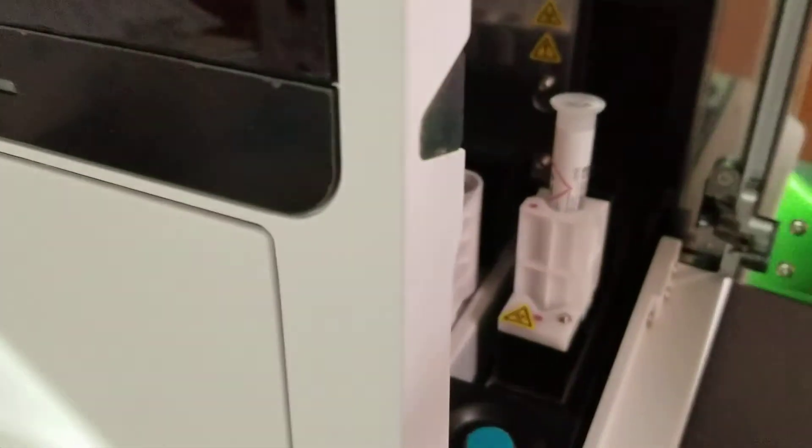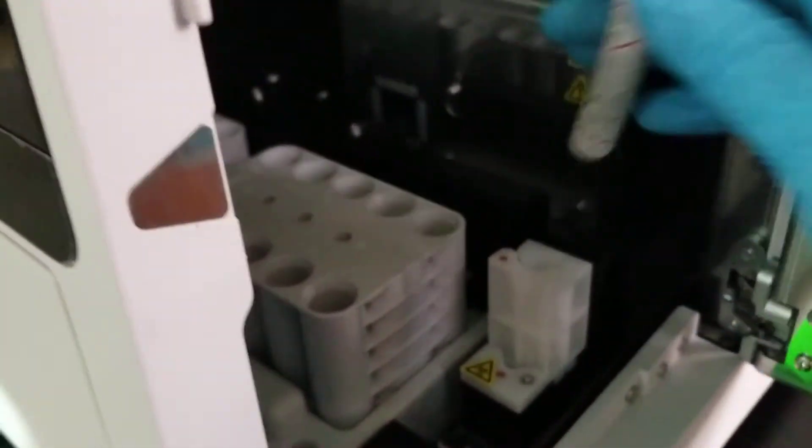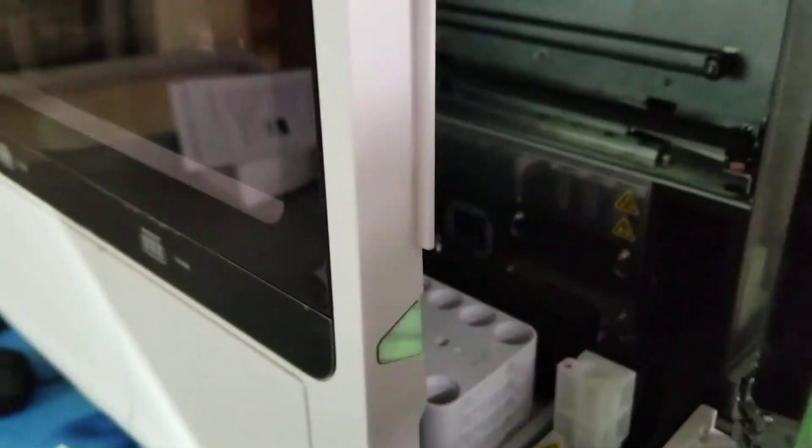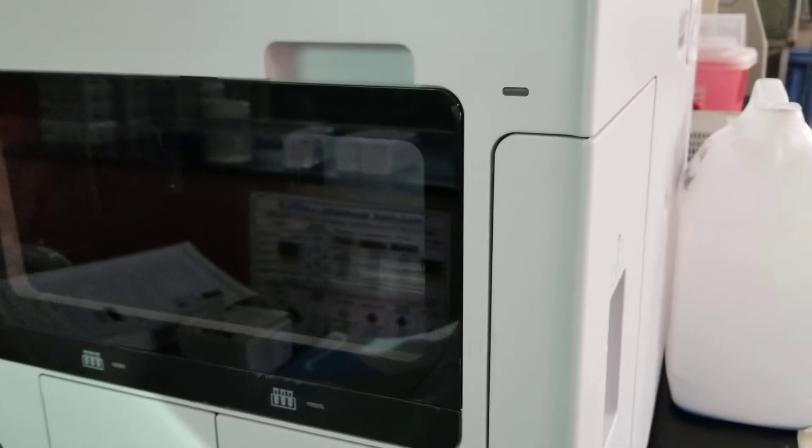I like that because students are able to look in and see what's happening. It's just your camera doesn't pick that up. So it just came out. Did you see that? So we can pull it out. We want to pull it out.